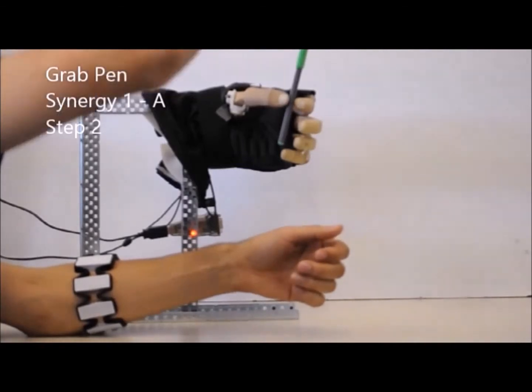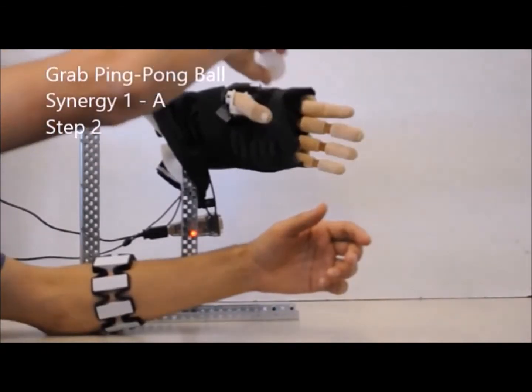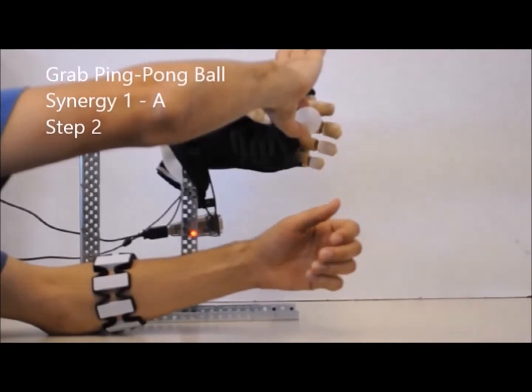These intermediate steps have been carefully selected after several experiments to allow adaptability of the hand to a wide range of objects.